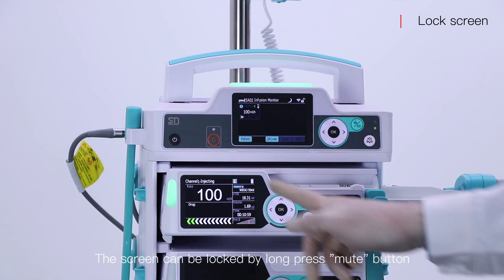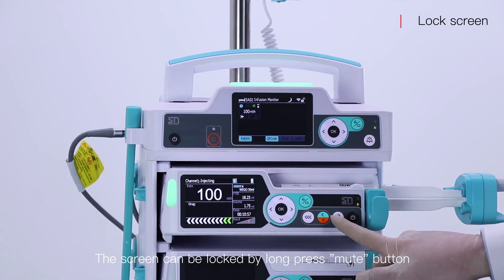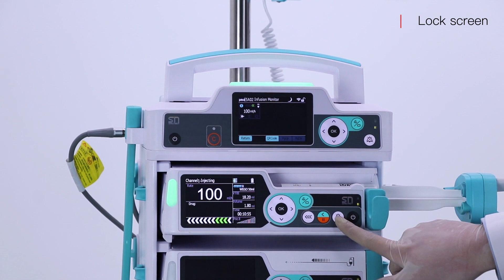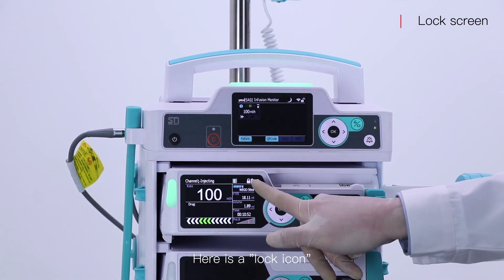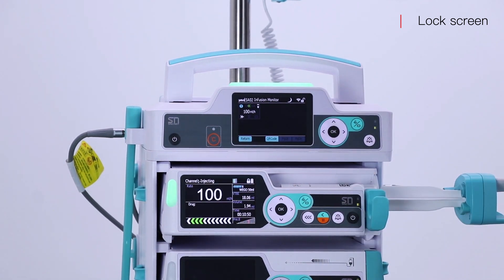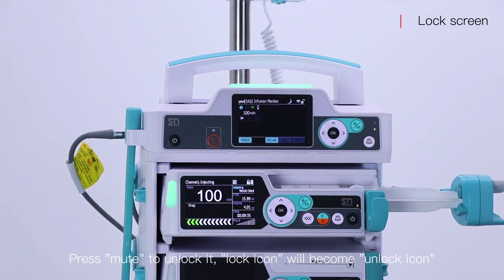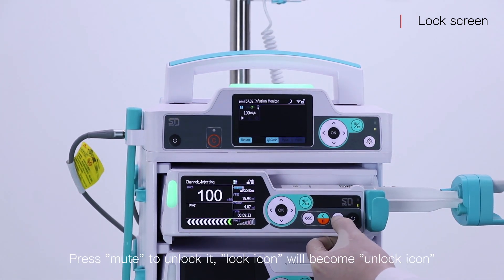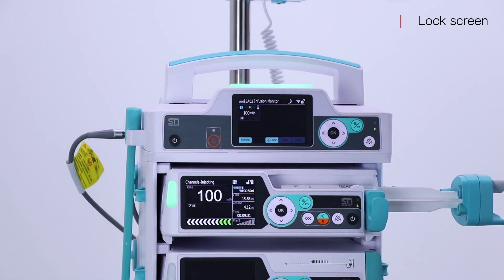The screen can be locked by pressing the mute button. Here is a lock icon. Press mute to unlock it. The lock icon will become an unlock icon.